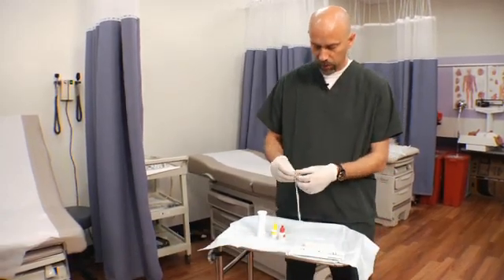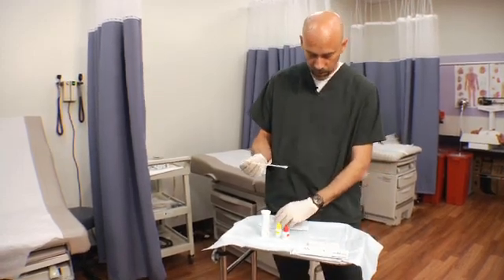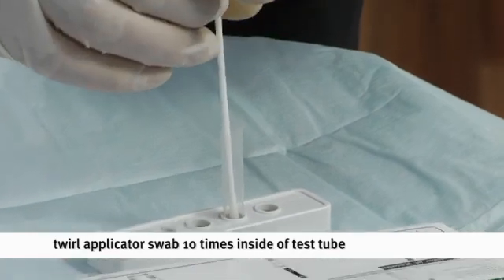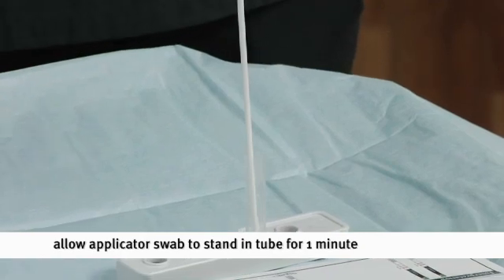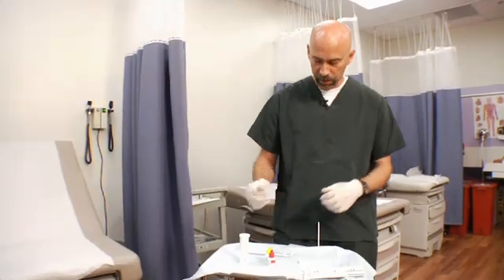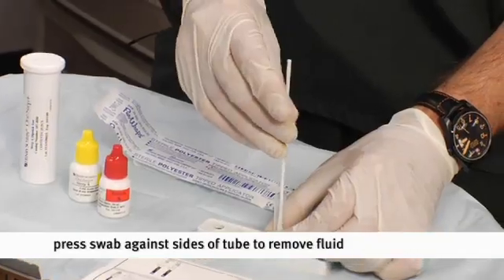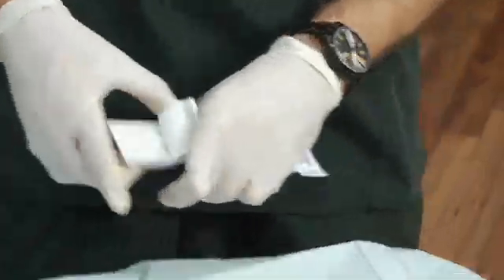Then we're going to take the swab that we obtained from our patient, and remember not to touch the end of this, and we're going to insert that inside of our test tube, and we're going to twirl that 10 times. And then we're going to let that swab stand for 1 minute inside of the fluid. Okay, a minute has passed, and our next step is we're going to remove the swab from the test tube, and press it against the sides so we get as much of the fluid as we can out of the swab. And we can place that back inside of the paper there.